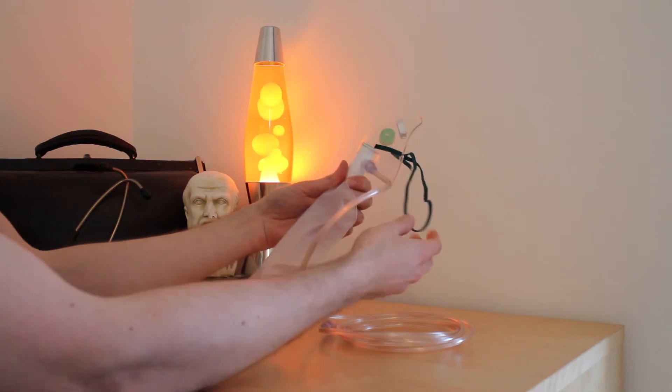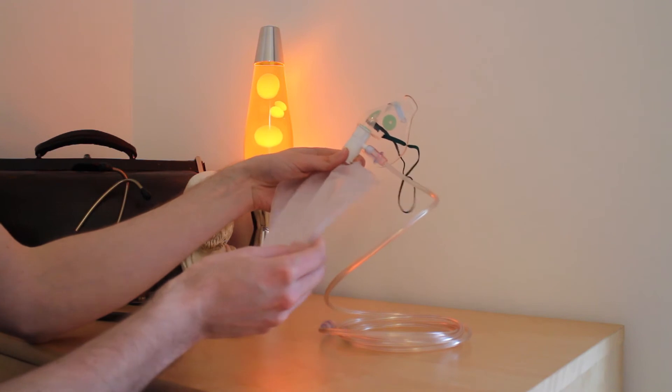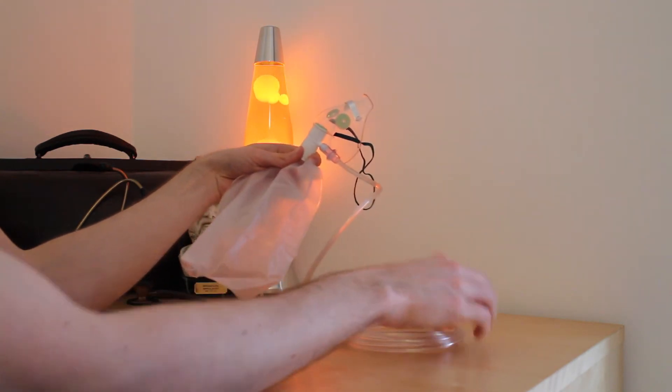It comprises a plastic mask with an elastic band to secure the mask in place, plastic reservoir, and plastic tubing.